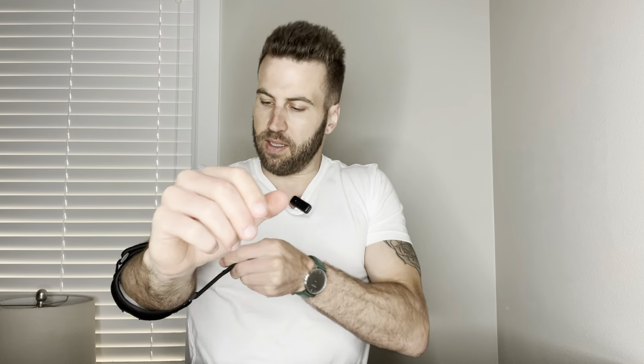So these are amazing. They're going to provide you a lot of support on your elbow. They're very comfortable. Let me go ahead and just put it on. It comes with longer straps so they're more easily adjustable and also just a very comfortable fit. We've got that one on and it's a nice fit — you want it snug, but you don't want it too tight. So this is a good fit. Let's go ahead and get the other side on.